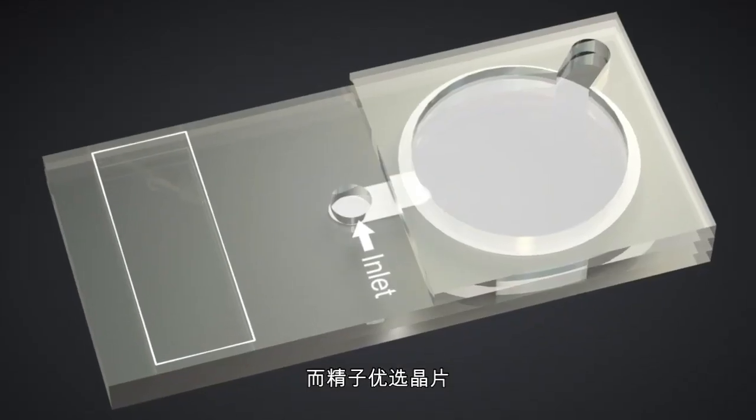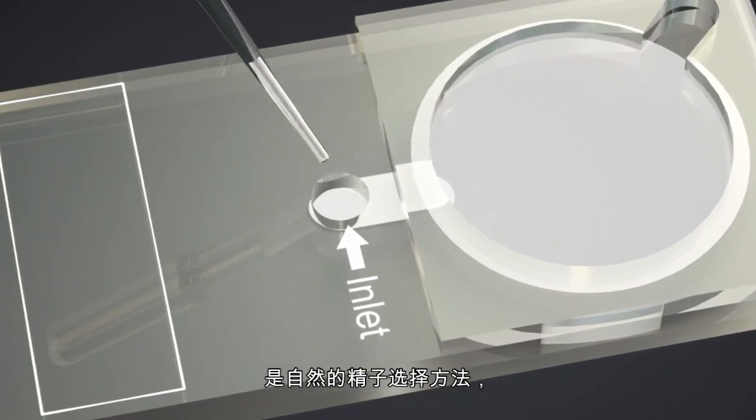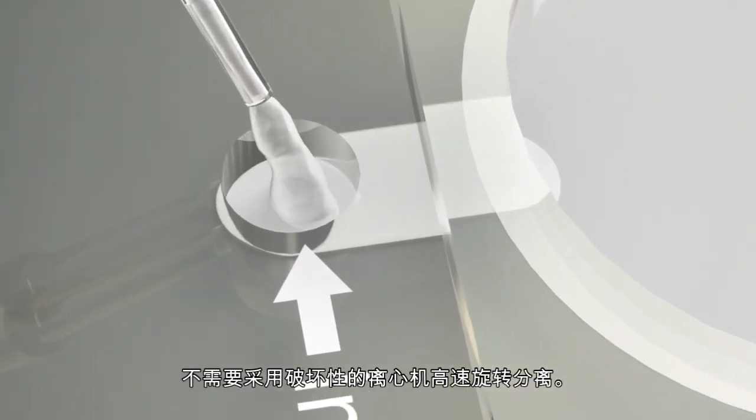This new sperm selection microchip allows natural sperm selection without the need for damaging centrifugation.